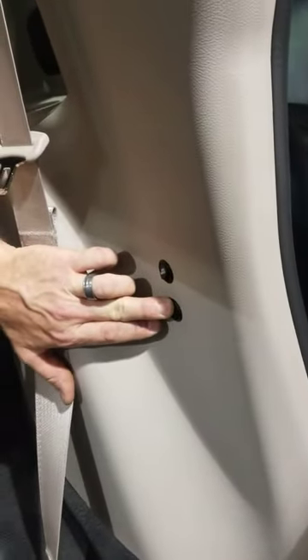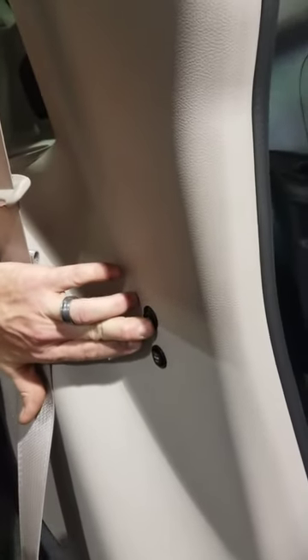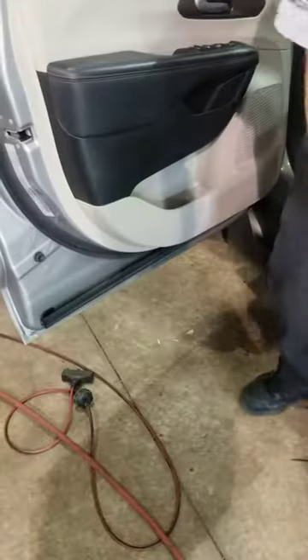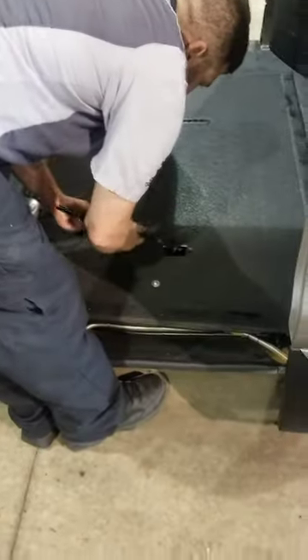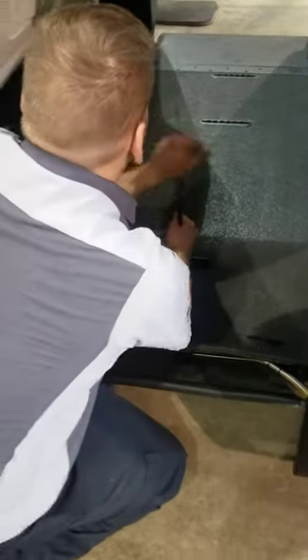This has its own dedicated battery for the Sure Deploy. But if this system isn't working or there's some other motor failure, there is another override right here. You pop up this cover — there's an override tool right here in the driver's front door. It goes down into here, you have to align the gear, and then you're able to hand crank the ramp out.